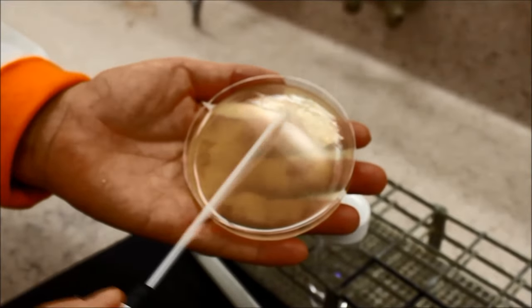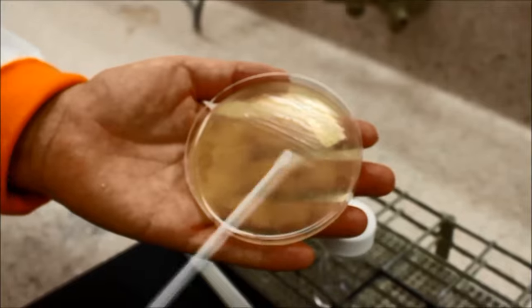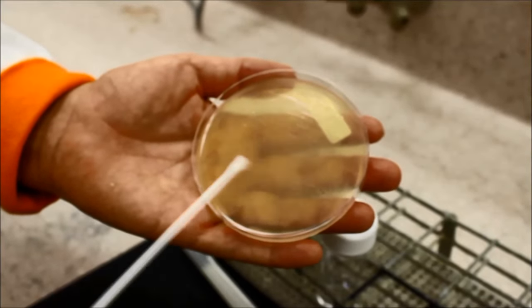Carefully swab the entire surface of the agar plate, ensuring that the swab overlaps each time to evenly distribute the inoculum.